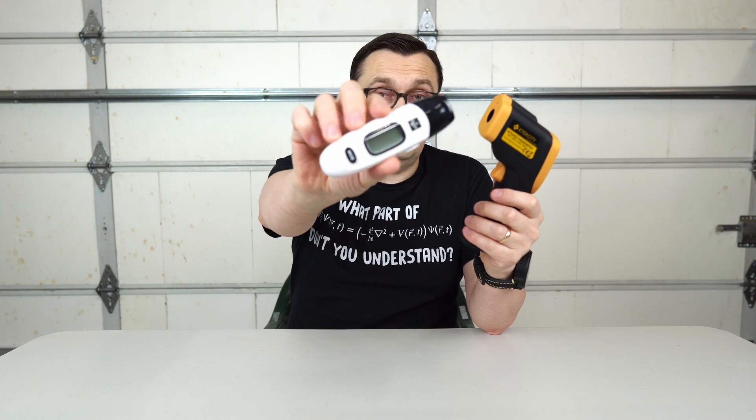Obviously, if I would have a choice between these two thermometers to check my body temperature, I would go with this one, of course. And this one could be as a backup. If you don't have anything to measure your temperature, you can use this one, but the professional one is going to be the best.